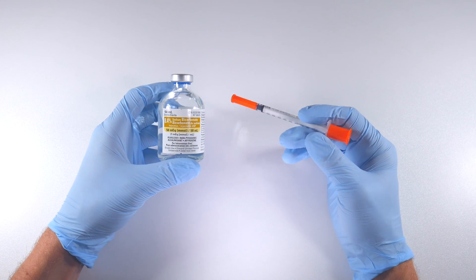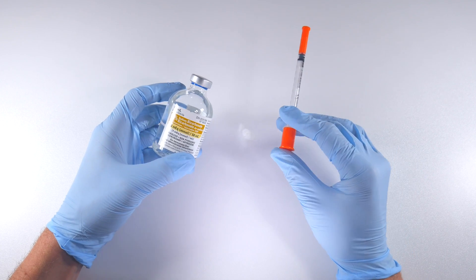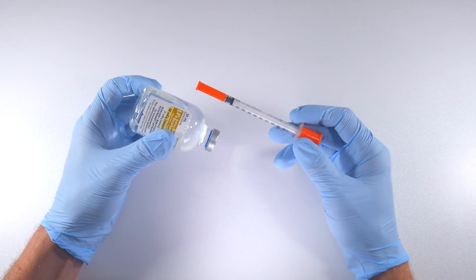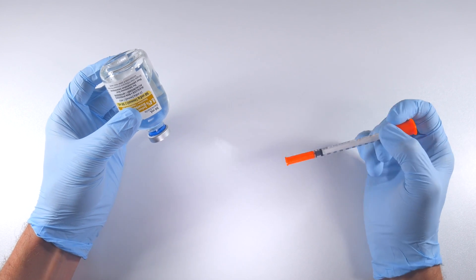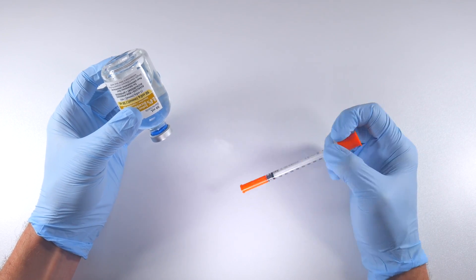So you'd be better off getting those systems that already exist. Actually, some of the systems now, what they do is they have one of these in their dispenser and this is permanently hooked up, and you draw out from a bit of a catheter that's in it.